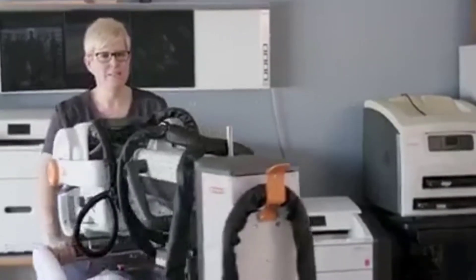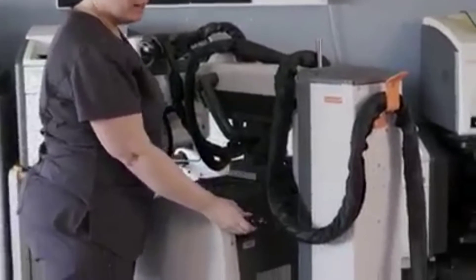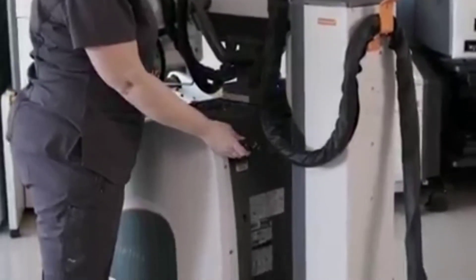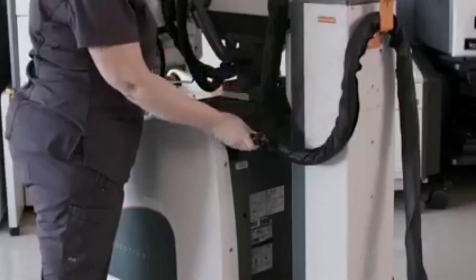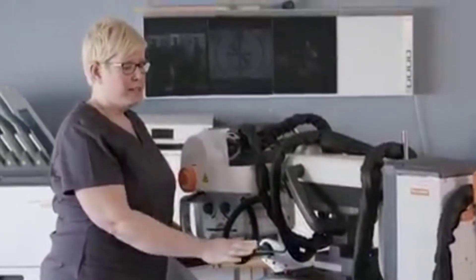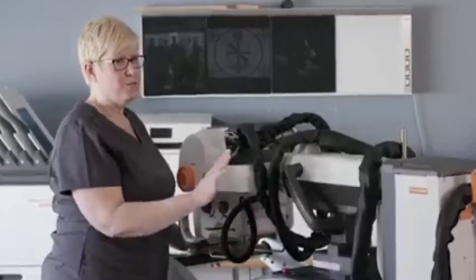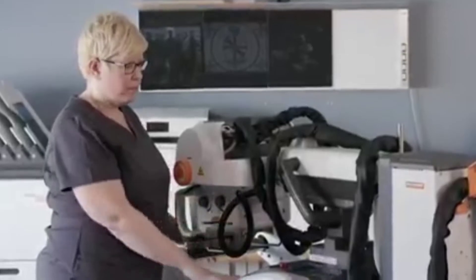On the opposite side of the cart, you'll notice we've moved the position of the plug. The retractable plug is now in a higher location, so it's much more ergonomic for the technologist. It also is going to reduce service costs because the cord being raised will not be left dragging and be run over by the cart.